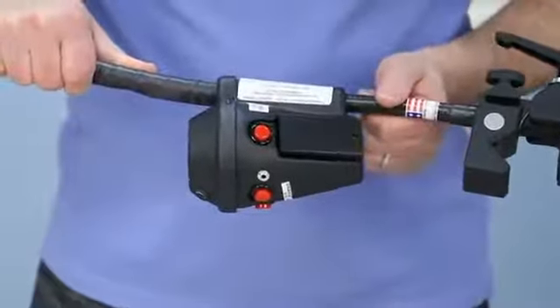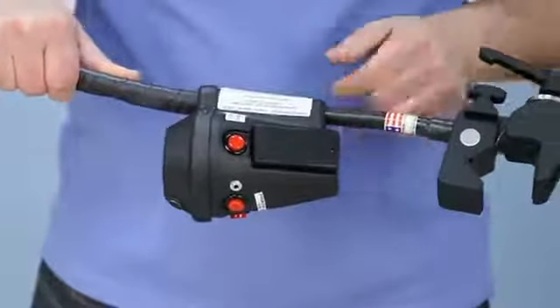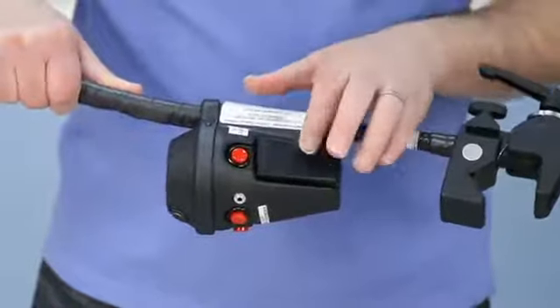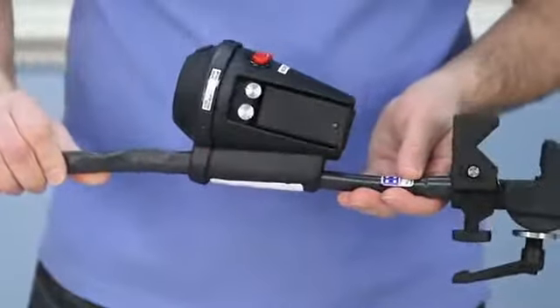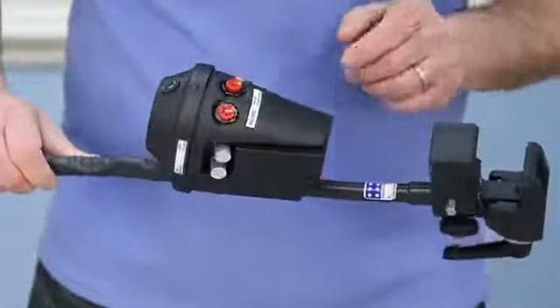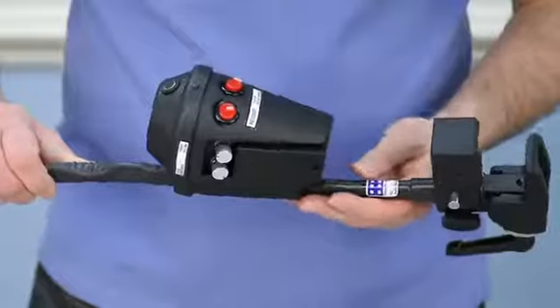The communicator runs on four AA alkaline batteries. There are two battery compartments, one on the left side, two AAs, and then one on the right side as well. So you just use a Phillips head screwdriver and you put your batteries in there.